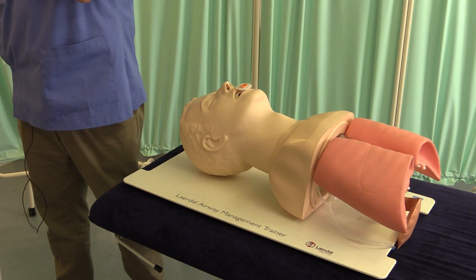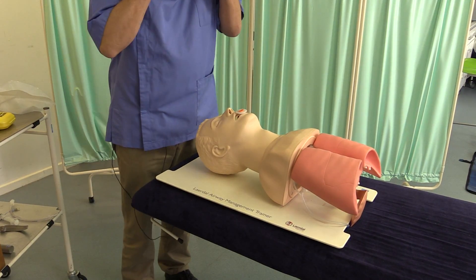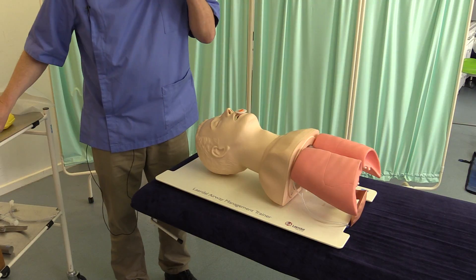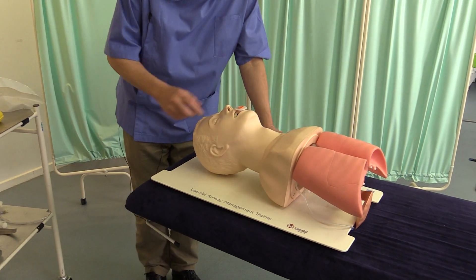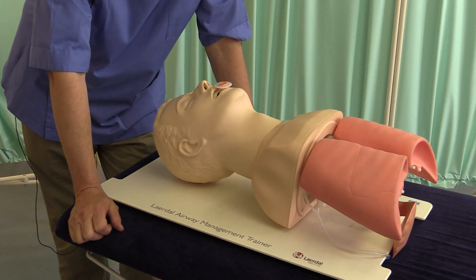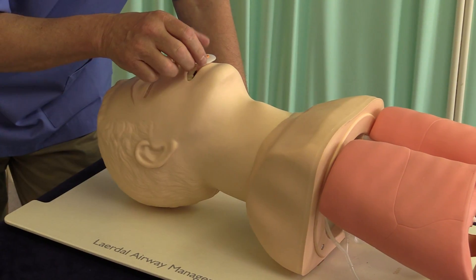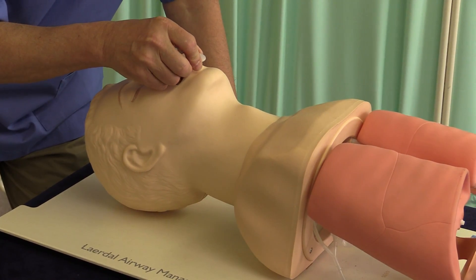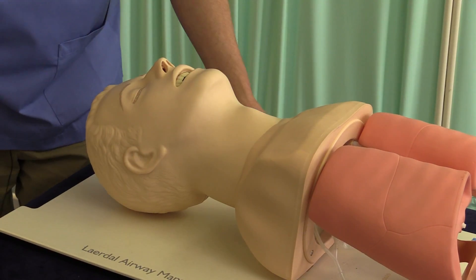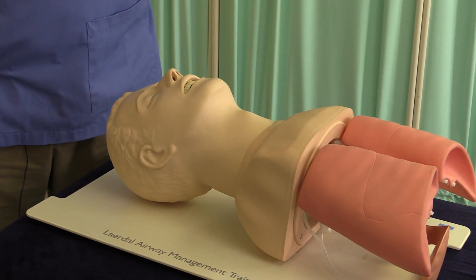When removing an oropharyngeal airway, very often as clinicians we ask the patient to take it out themselves. If the patient is conscious enough to physically remove the airway, they're probably conscious enough to maintain their own airway. So letting the patient take it out is a good gauge of their level of consciousness.